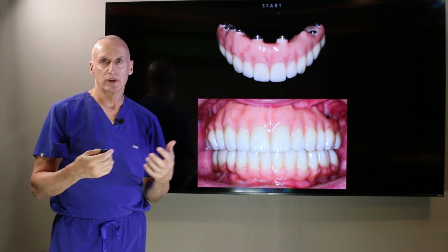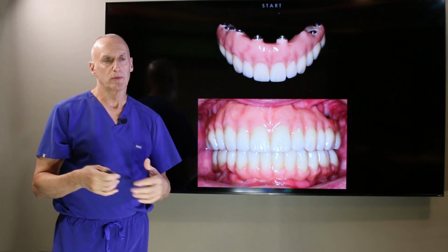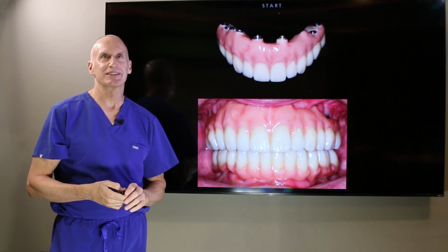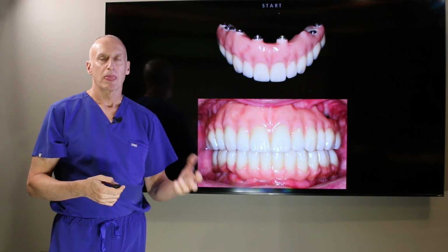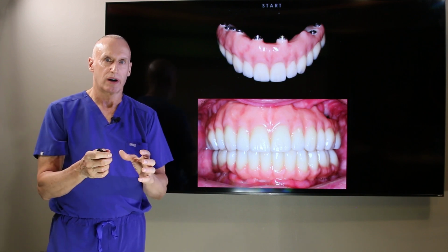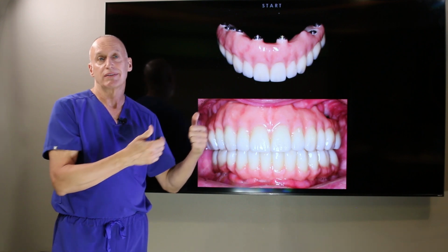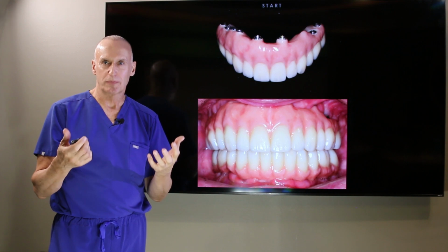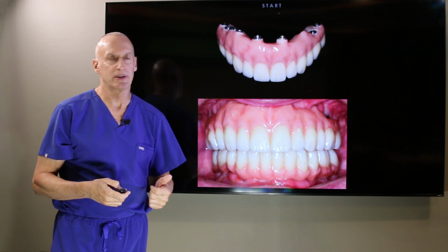So we only do FP1 and FP2 here for the maxilla. No bone removal. And that's so important. I know that I've probably stressed and reiterated that several dozen times in my videos. But it's your precious bone that we're talking about. And if these treatments cost a little more, even if they cost a lot more, and they take a little bit more time, we're sparing your precious bone, which also helps your gum tissues.